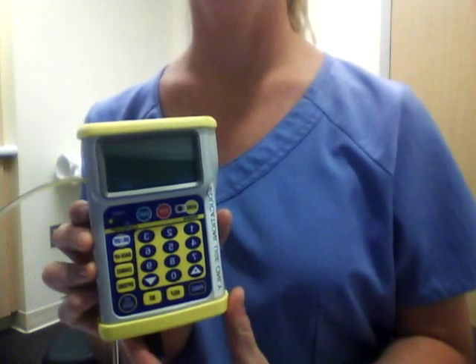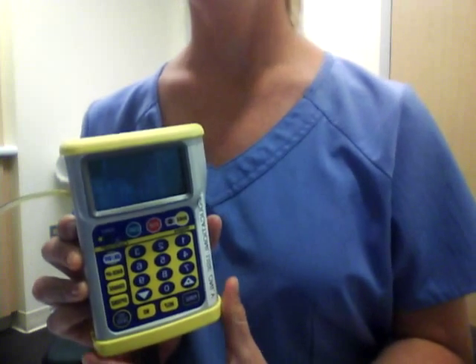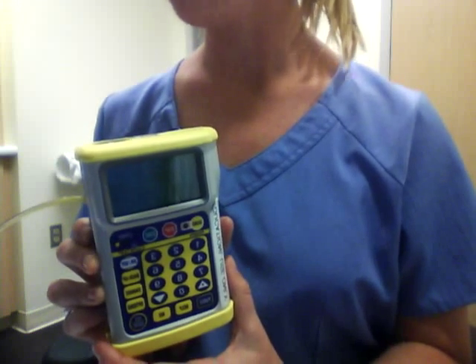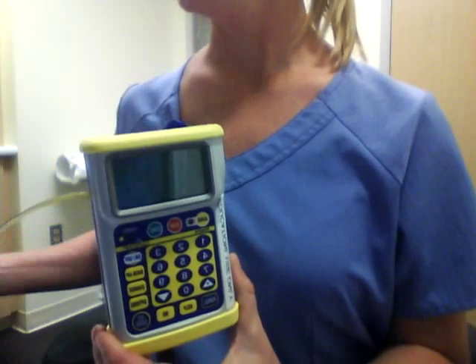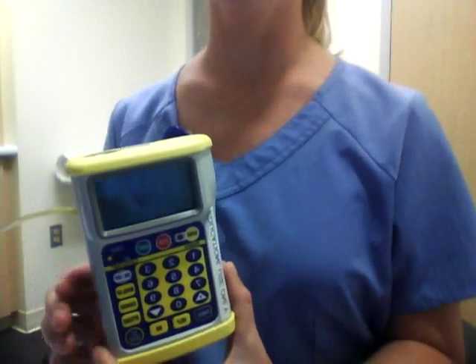Hi, my name is Avery Turber and I'm here to do some teaching about the Gemstar epidural infusion pump. This video will cover how to review the program before starting the infusion, priming the line, starting an infusion, changing a cassette, shift totals in history, and changing the batteries.